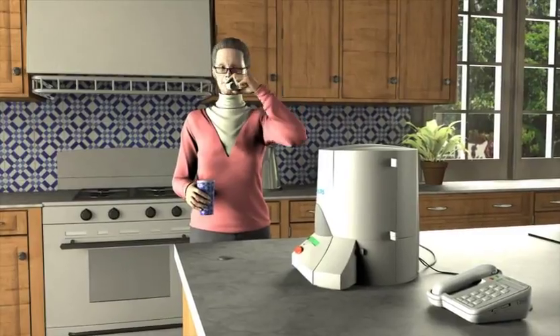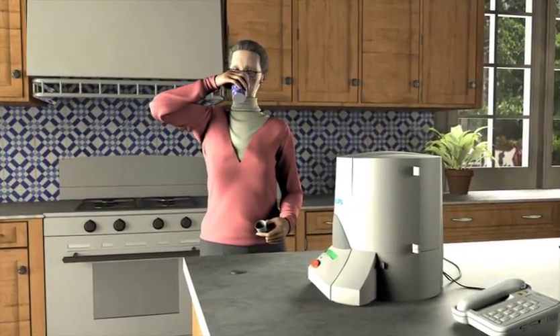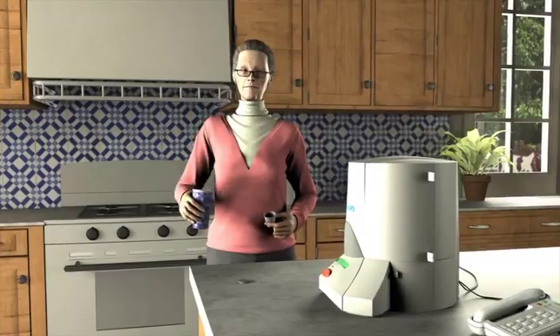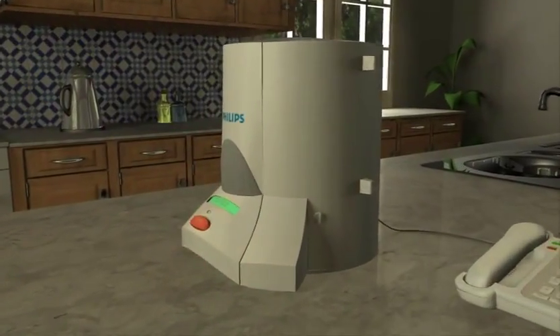For seniors and other patients with complex drug regimens, the Philips medication dispenser is more than just a tool. It's a life-changing solution.